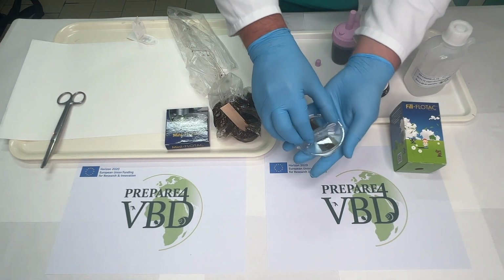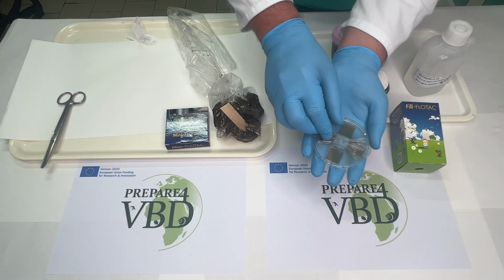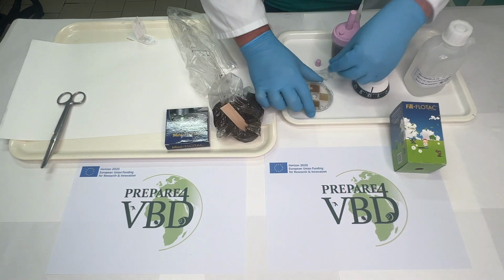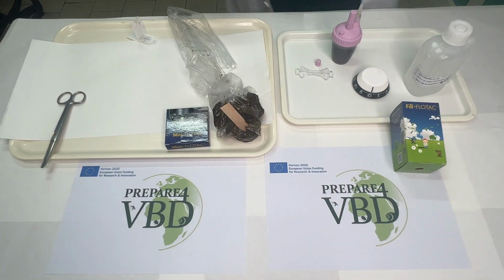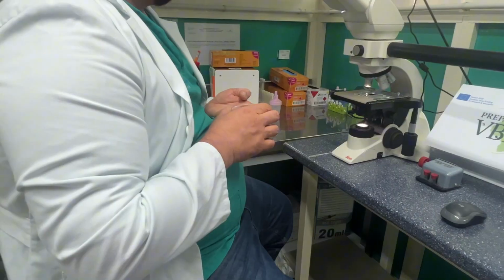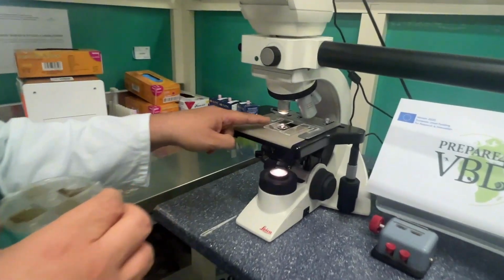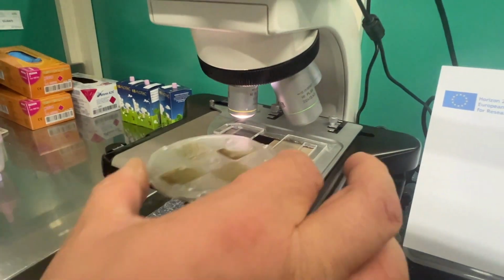Remove the key after the translation. Okay? And then he will examine our sample under the microscope. Okay, so Antonio will place the mini-FLOTAC on the microscope adapter with the ruled grid of chamber number 1 on the right.